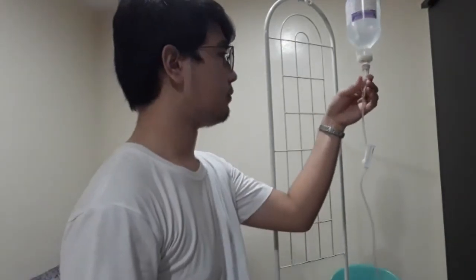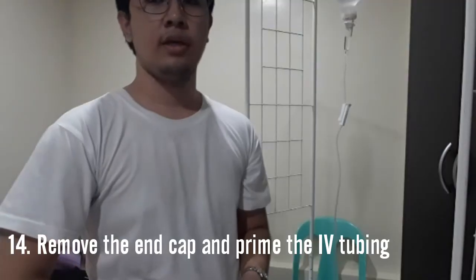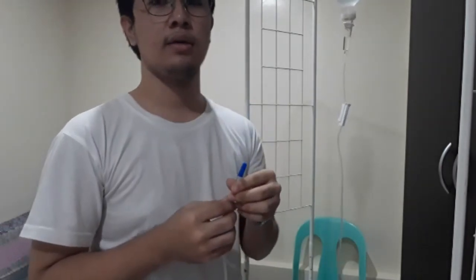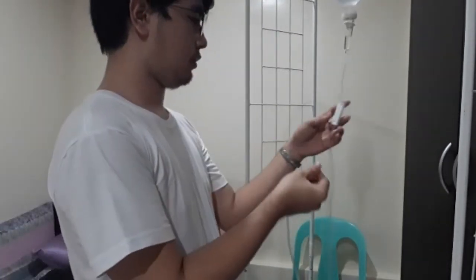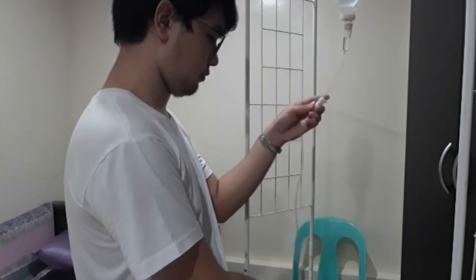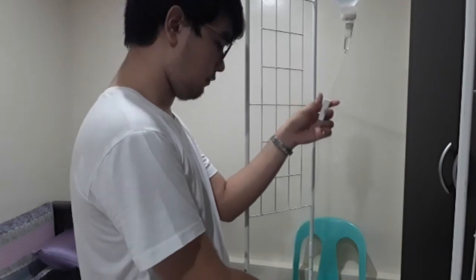So now we're gonna squeeze the drip chamber and fill it at least halfway. So we're gonna squeeze it. Okay. So that's about halfway. After filling it halfway, we will now remove the end cap and prime the tube by allowing the IV fluid to flow through the tubing. So we'll remove the end cap. Then we'll open the clamp to allow fluid to come through. Okay, fluid is flowing.